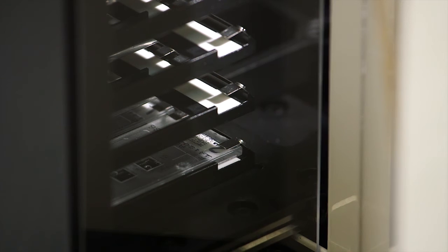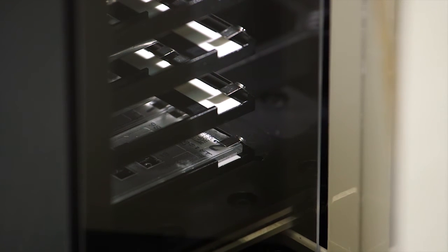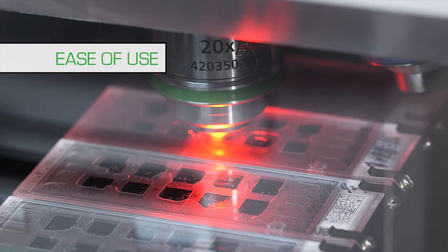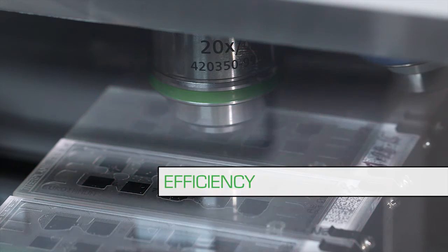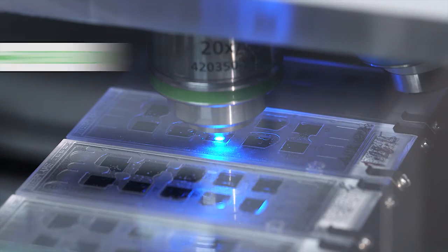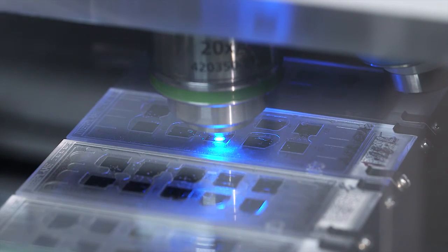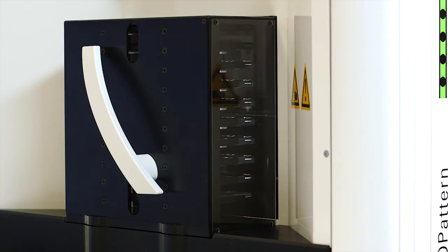A full run of 500 wells is completed in two and a half hours of walk-away time, providing ease of use and increased efficiency and optimized laboratory workflow. Result images are captured in only 18 seconds.